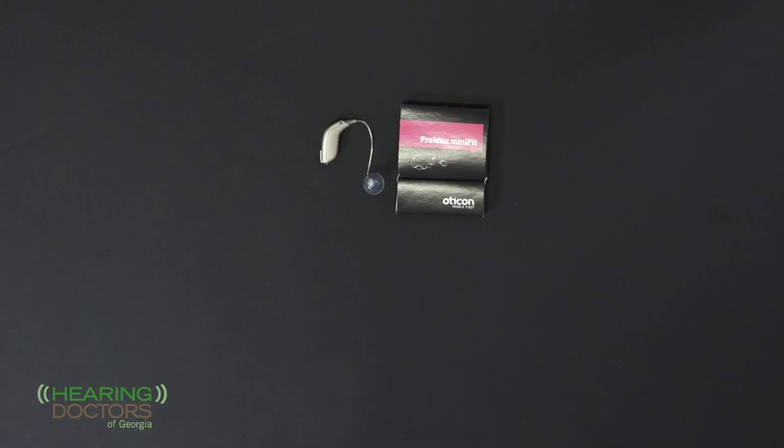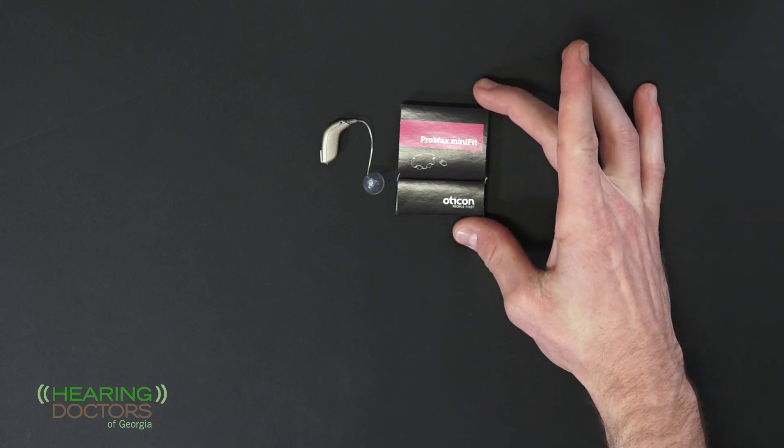Now we will teach you how to change the wax filter. First, make sure you have the correct filters for your hearing aid.